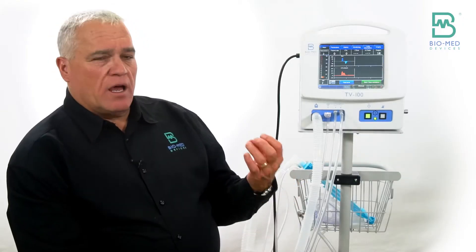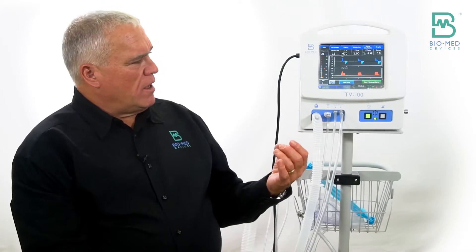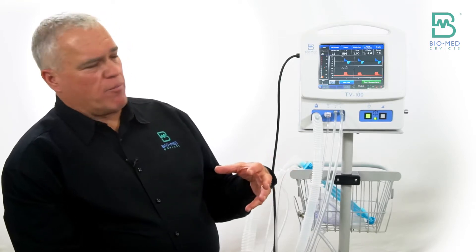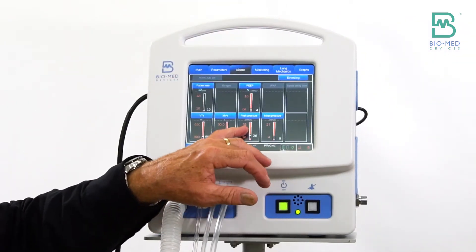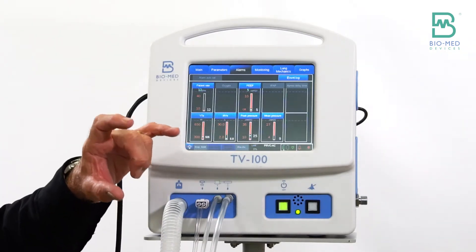One of the things that other manufacturers decided to do is set a high pressure limit, and for whatever reason in PRVC — normally on a vent when you set your high pressure limit, say to 35, you limit at 35 — but what most people have done in PRVC is they've elected to limit the pressure to five below wherever the high pressure limit is set. So in this case, my high peak pressure limit is set at 35, so a lot of people will limit at 30.